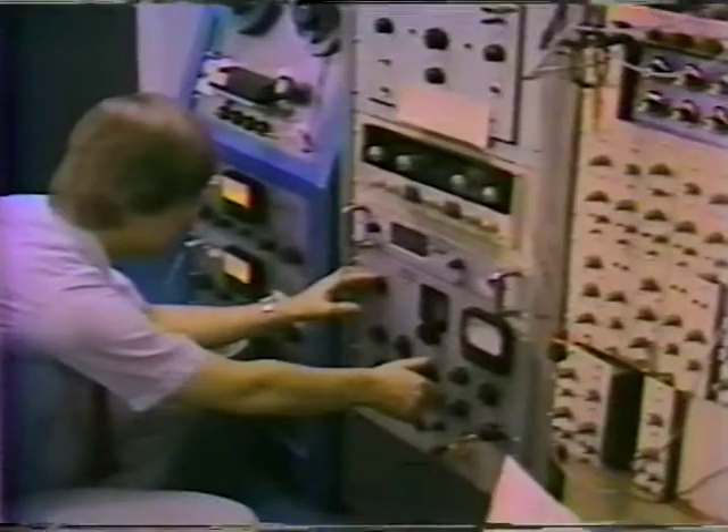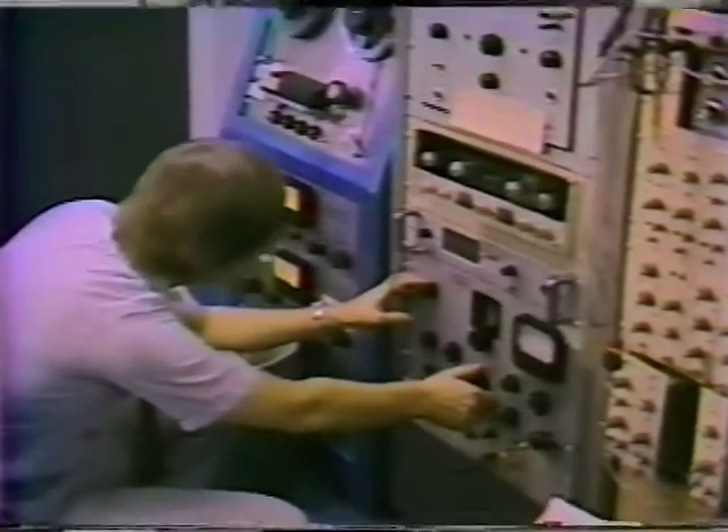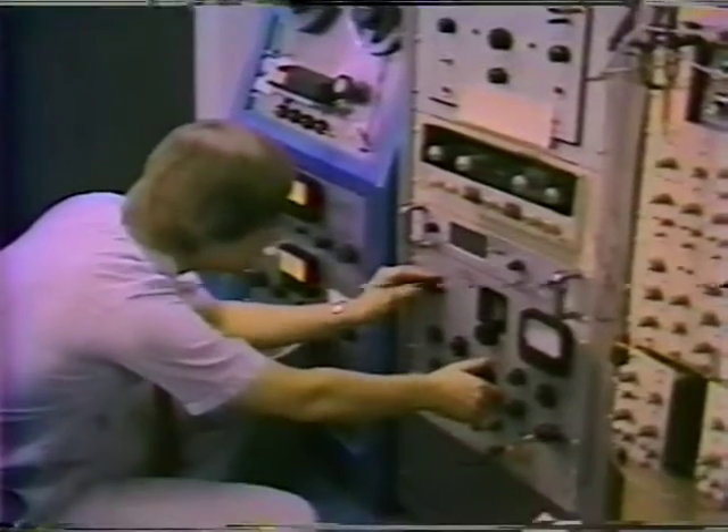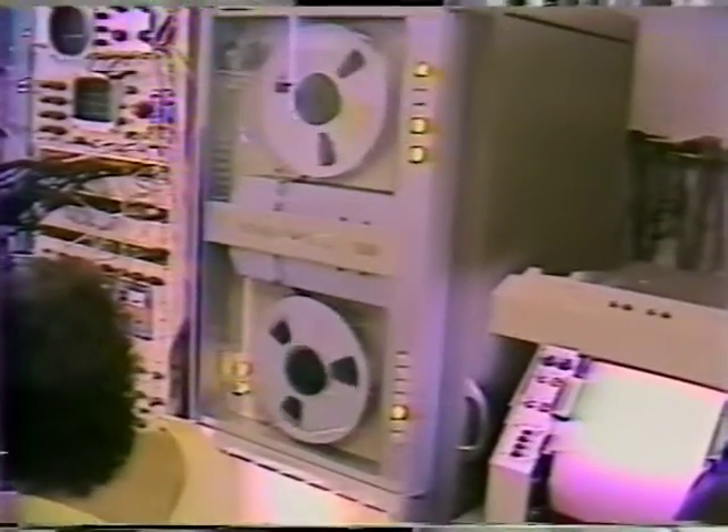This visual presentation is an attempt to demonstrate what we have learned over the years so that others may be encouraged to pursue such physiologic studies, exercising the appropriate controls so that valid data are acquired and the findings are replicable.